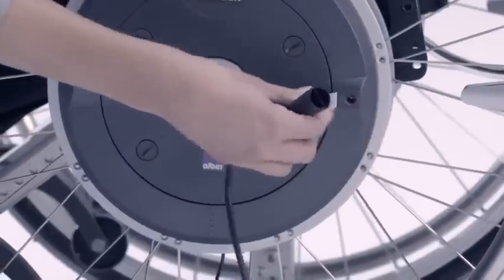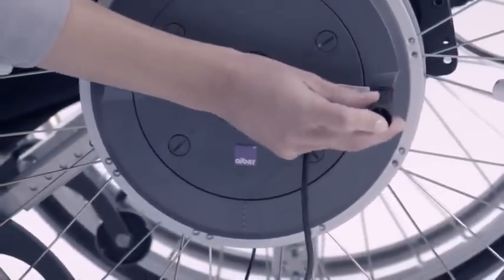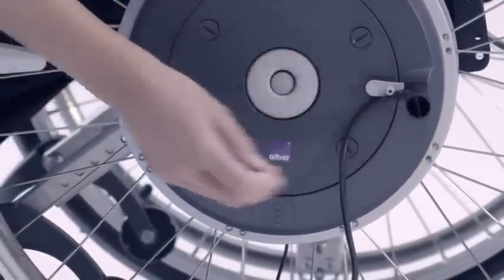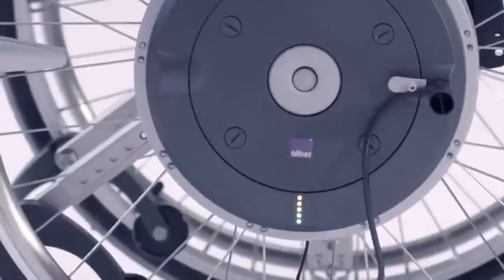The battery packs can easily be recharged using the battery charger. As soon as the pack is ready, it switches off automatically.